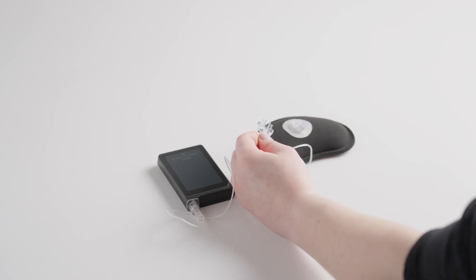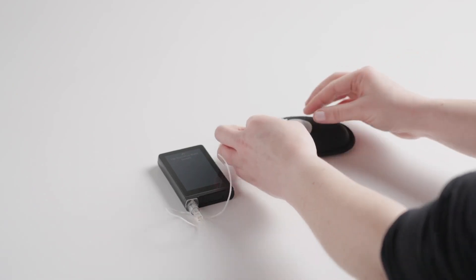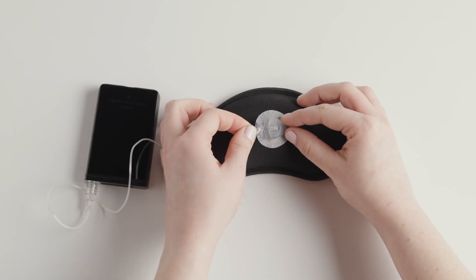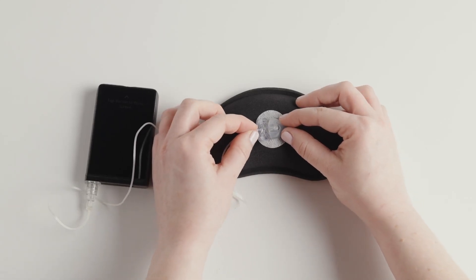To reconnect to the infusion set base, gently push the end of the tubing back into the plastic housing still on your body.